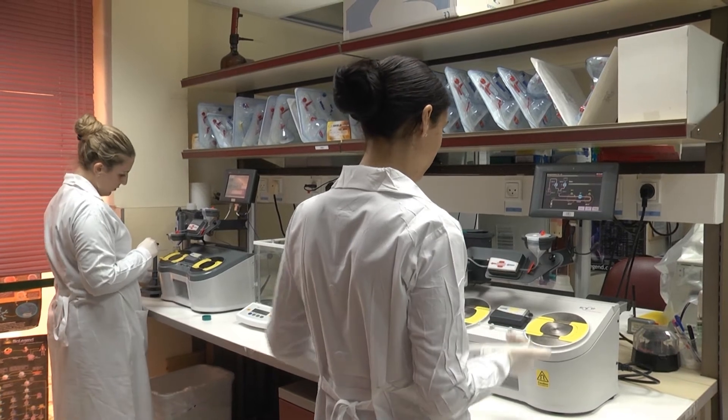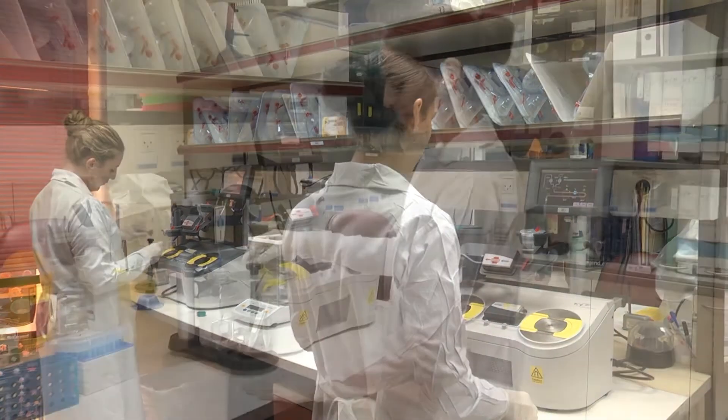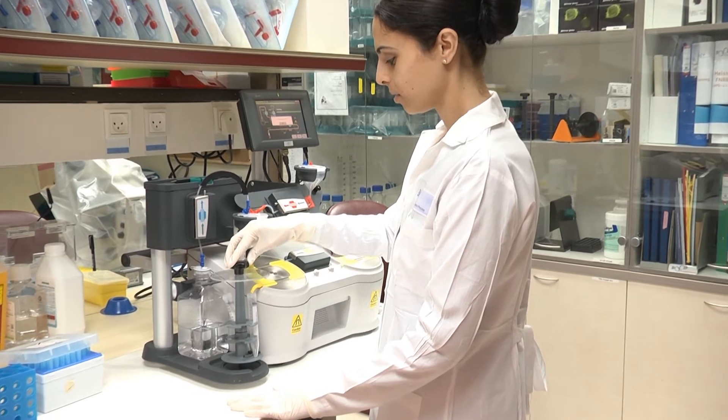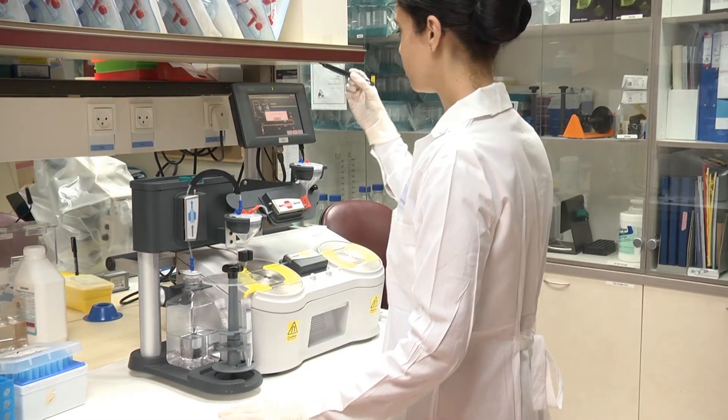SAPIR separations apply simple and proven immunomagnetic cell isolation principles incorporated in an automated, user-friendly and flexible device.